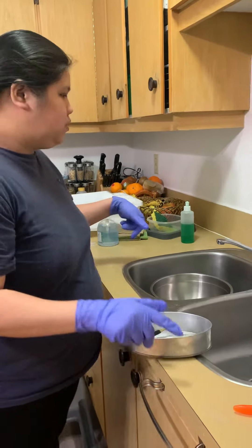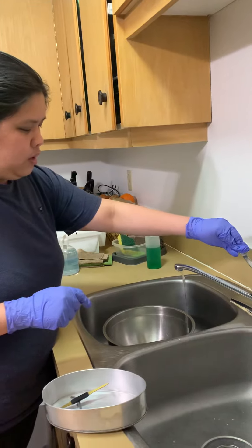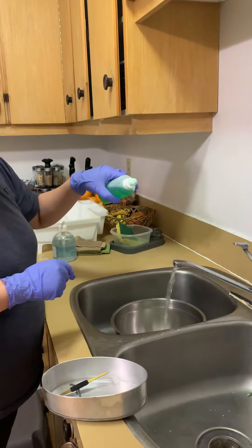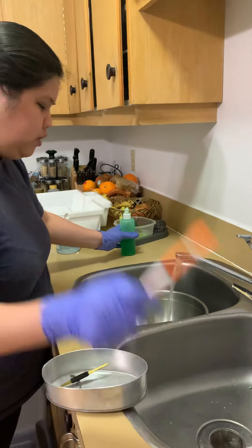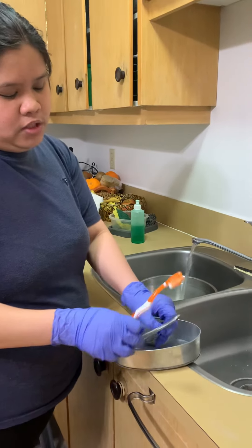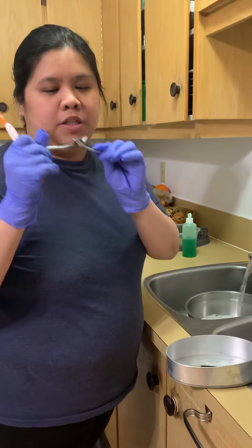In this video, I'm going to use liquid detergent. Let's put water in this basin, I'm going to put the cleaning solution, and I'm going to use this brush for brushing the hinges and solution from the mosquito clamp.